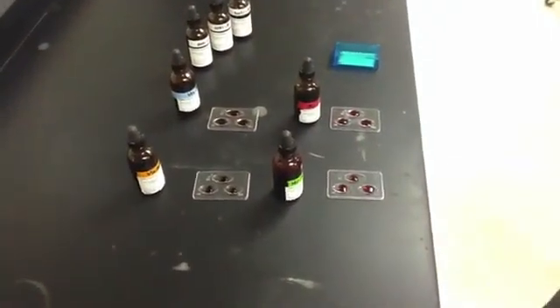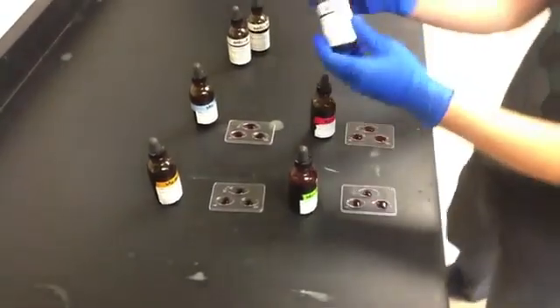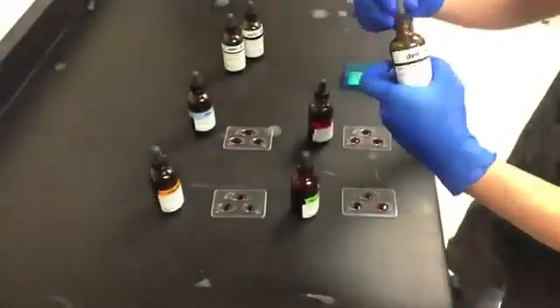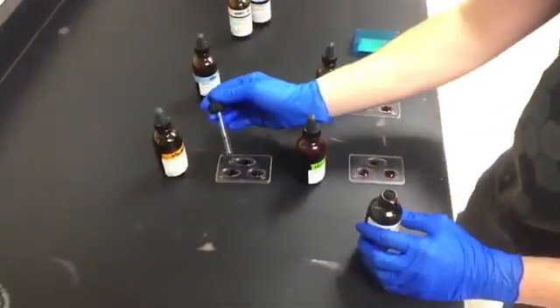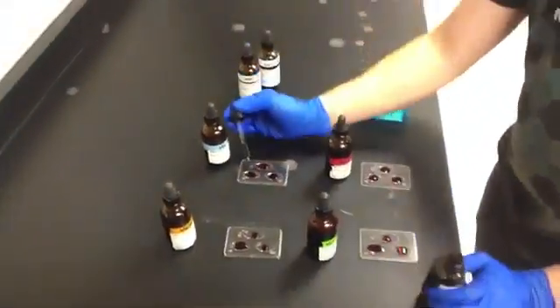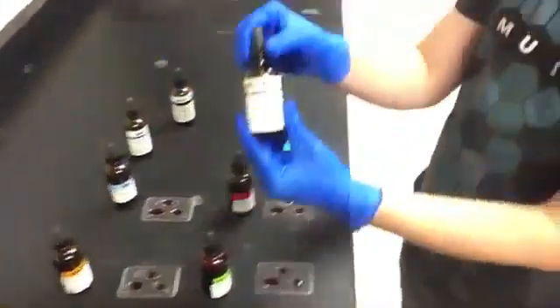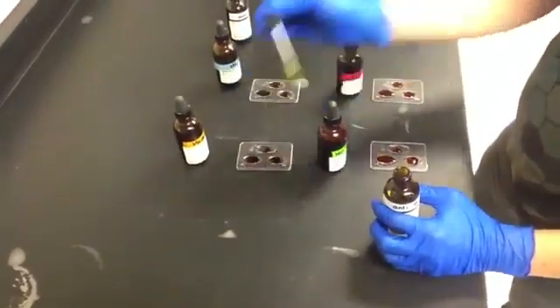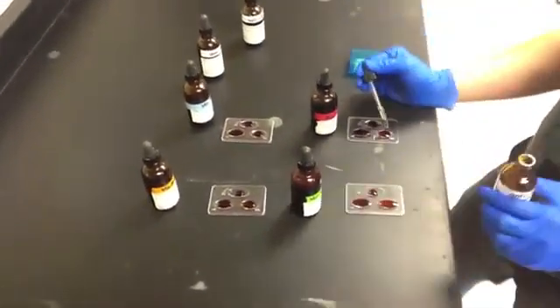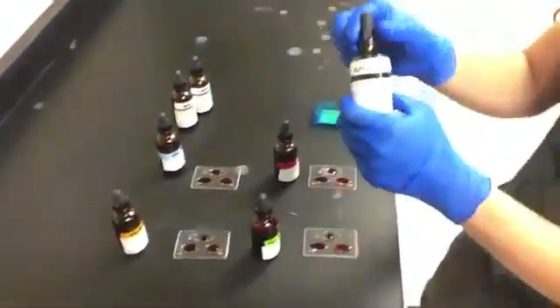Next, three to four drops of the antibody against antigen A are added to the A-well of each plate. The procedure is repeated for the antibody against antigen B and for the antibody against the Rh antigen.